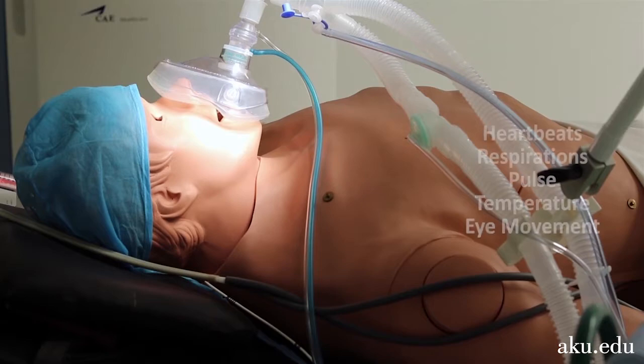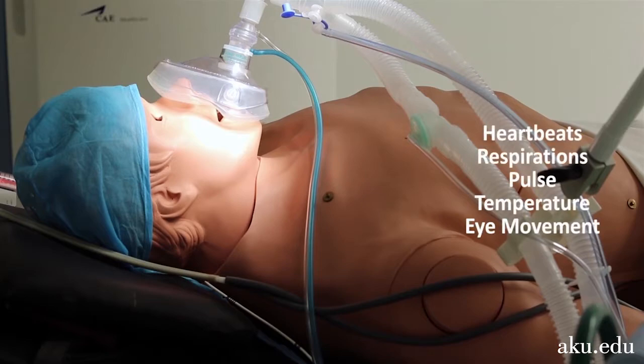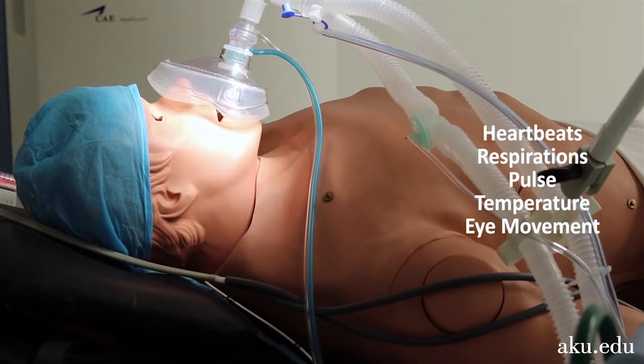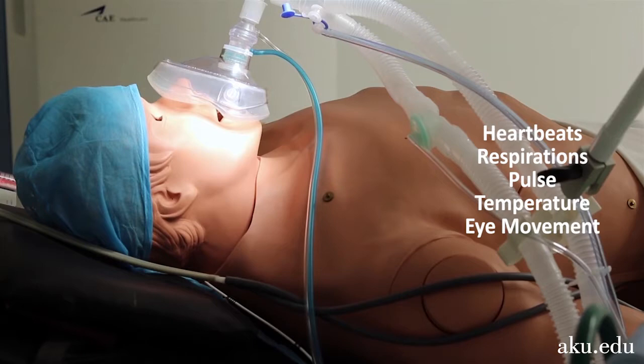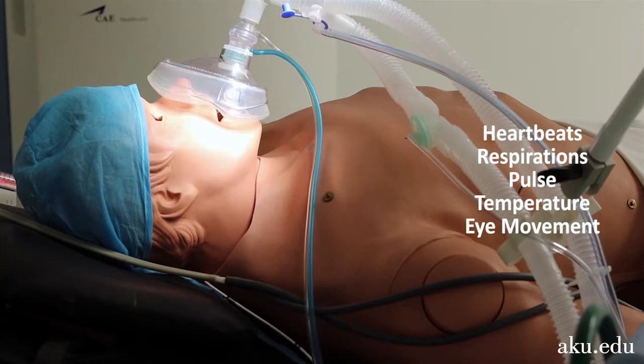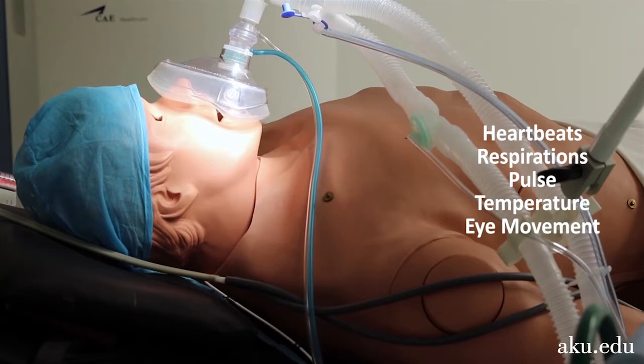It exhibits normal and abnormal heartbeats, respirations, pulse, temperature, and eye movement, to name a few.